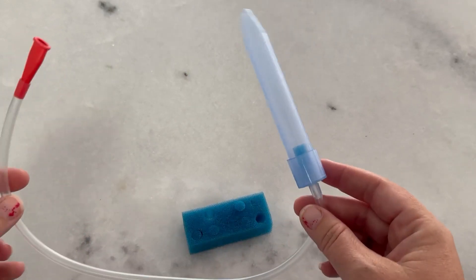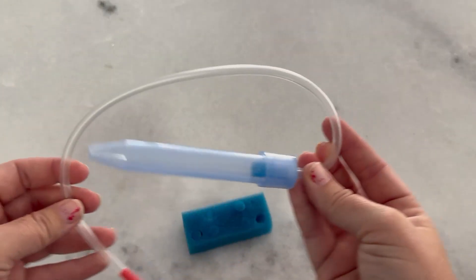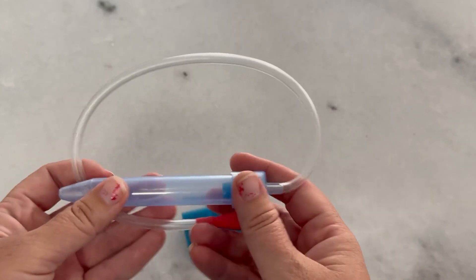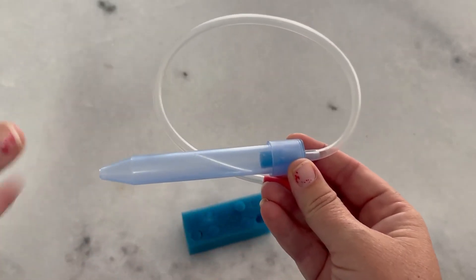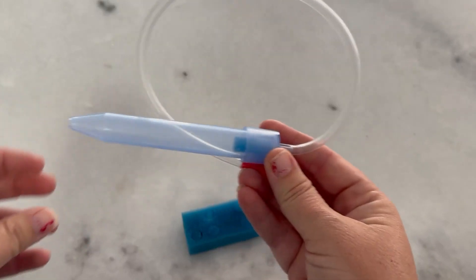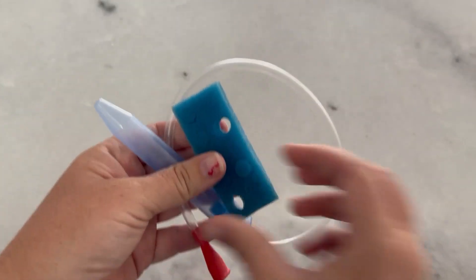But this has been such a great product for us for tough nights with our little one. Way better than the syringe sucker thing. I do recommend the Nose Frida — it has been wonderful for us.